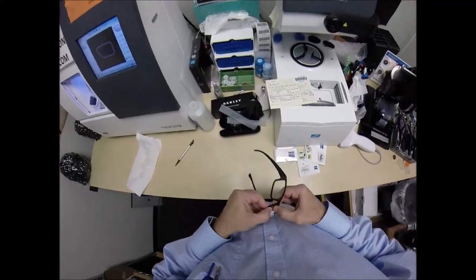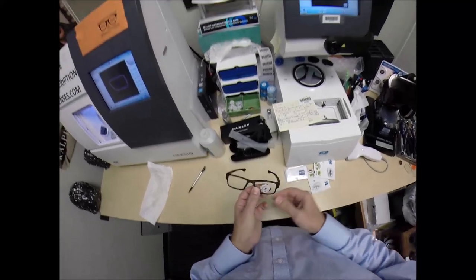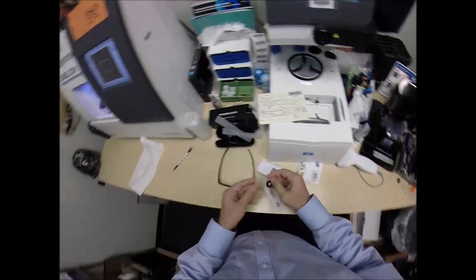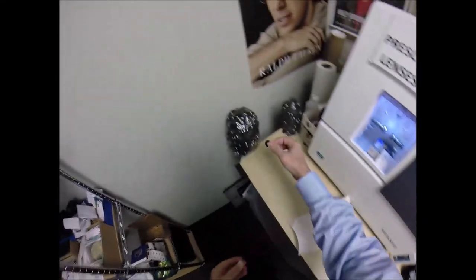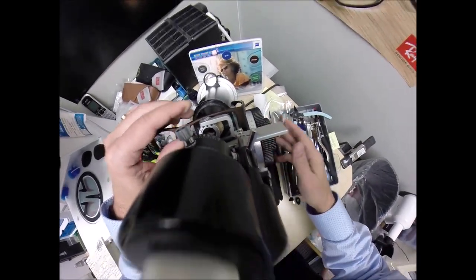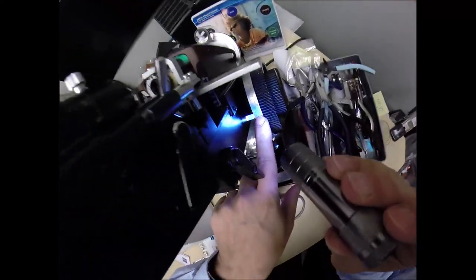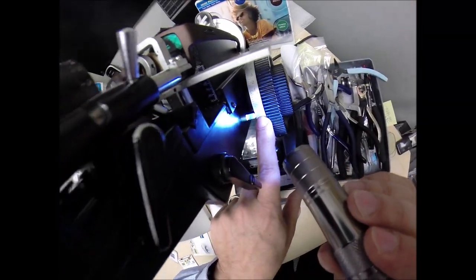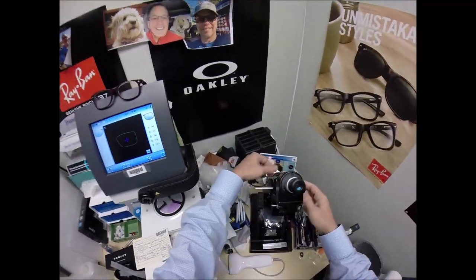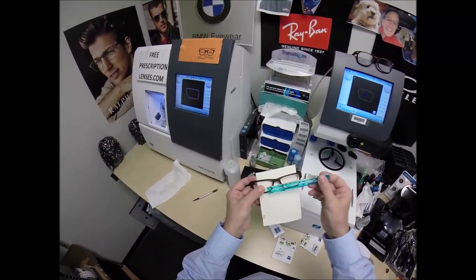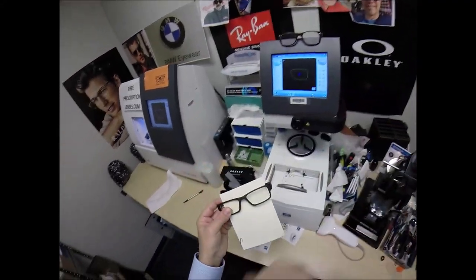Again, so I'm going to tuck it in at the outside corner, push down at the nose. Come on, you want to get in, I know you do. All right let's try this, let's do something a little different. I'm tucking in at the nose since it's pointy there and push down here at the edges. Now it snaps in. That comes off. Pull the sticker. Man these stickers, come on now. And let's turn the axis wheel to 170. Put it in over the black dot that got washed off. I'm getting, where's my flashlight? I'm getting minus 75, one tick mark away from one, one and a quarter diopters of astigmatism correction. We end up at minus 2 again. Now I think the pupillary distance got marked off, but you have a total of 61. I'm going to place the PD stick against my thumb on your right lens, and when we read it on the left we're getting 61 millimeters. So that has got perfectly.